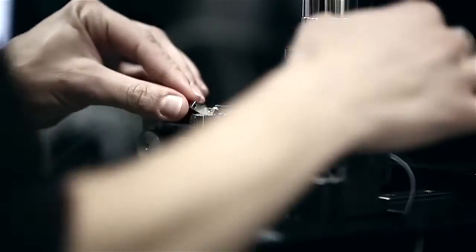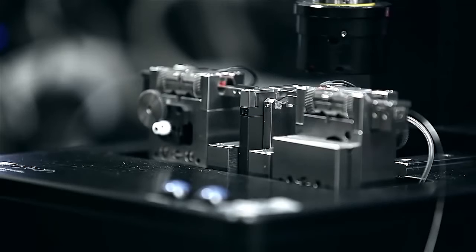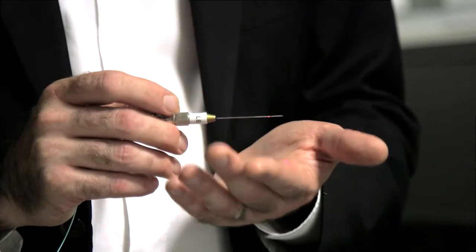There are a lot of possibilities with this device. A lot of the work we've done up to now has been focusing on helping breast cancer surgeons. But we realize there are other things we can do with it as well. So we're taking the same technology and bringing it into neurosurgery. That's how we're going to make safer brain biopsies.